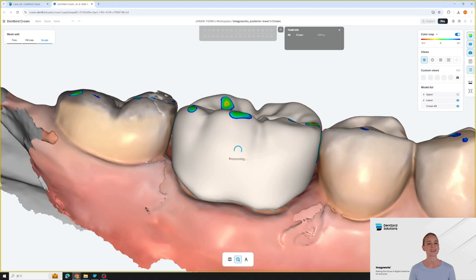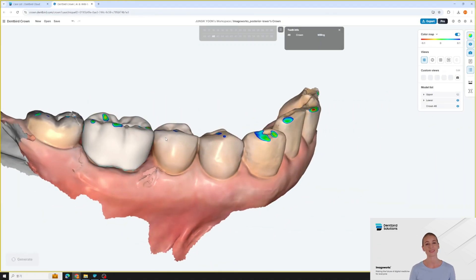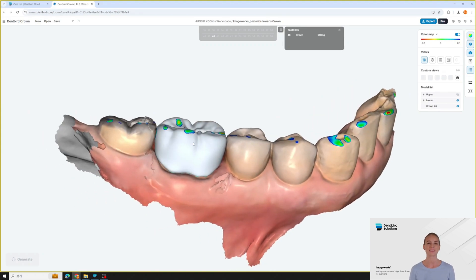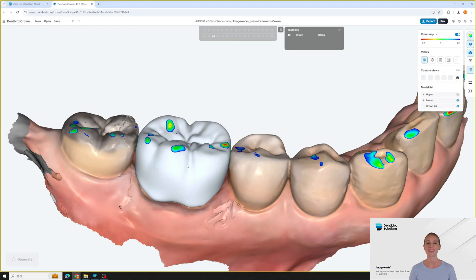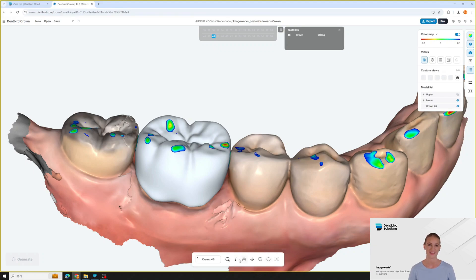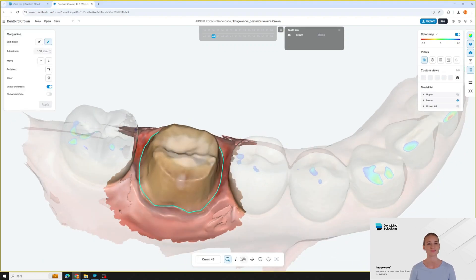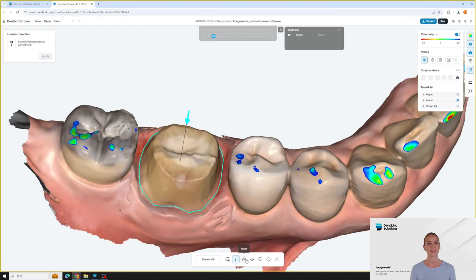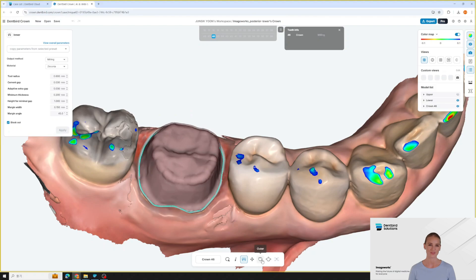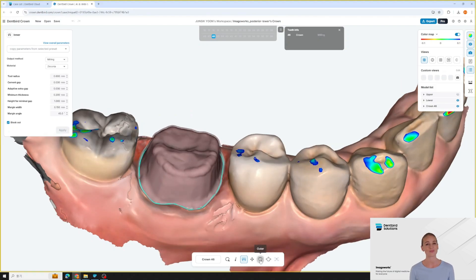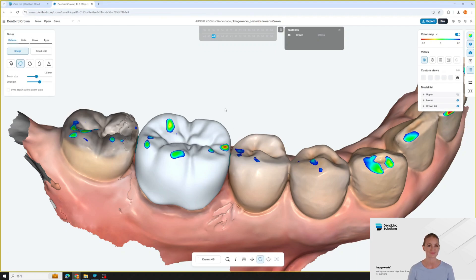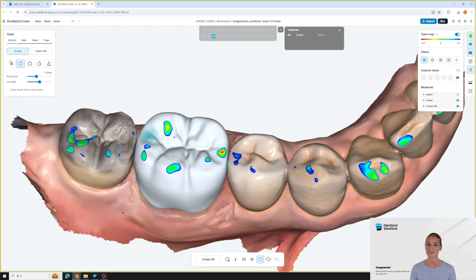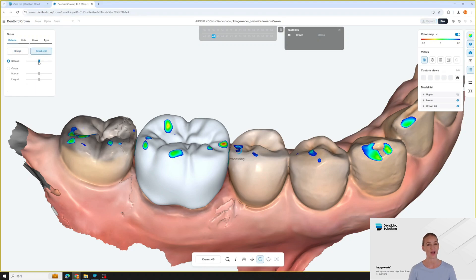AI generates pretty good designs, but if fine-tuning is needed, we offer CAD editing tools. If you need to make some adjustments after generating, just click on the crown and you'll have access to a variety of editing tools. You can easily modify the margin and insertion path settings if needed, ensuring a precise and customized fit for each case, and also precisely control the outer dimensions. With SmartEdit, you can easily drag and adjust grooves.